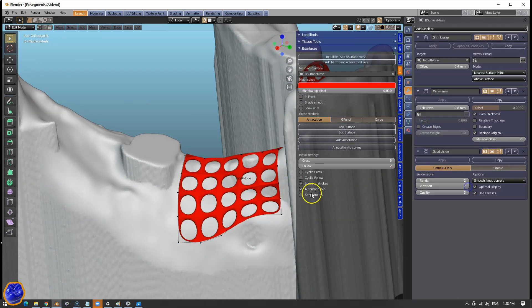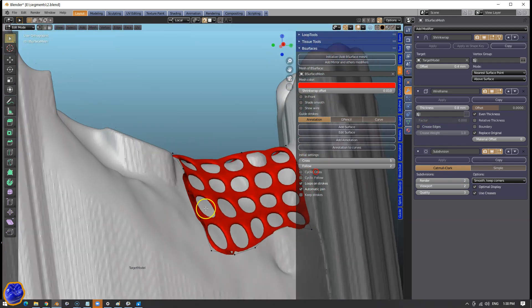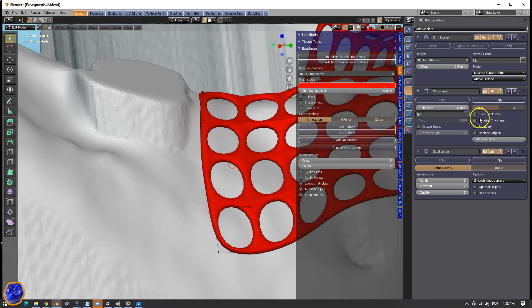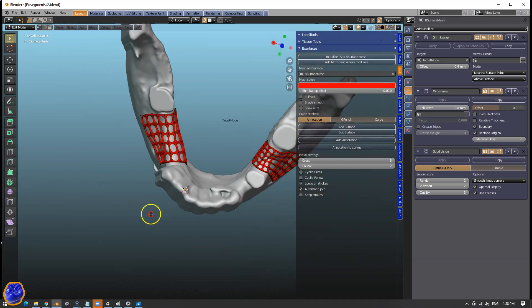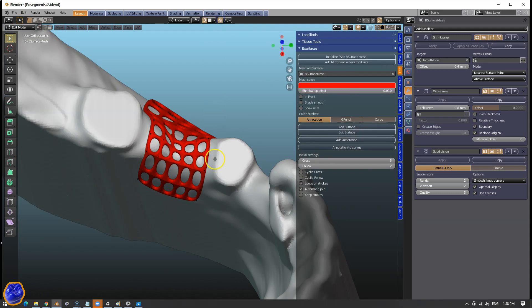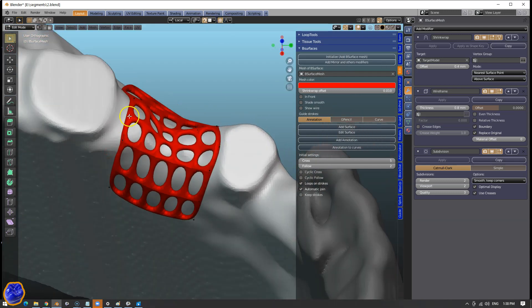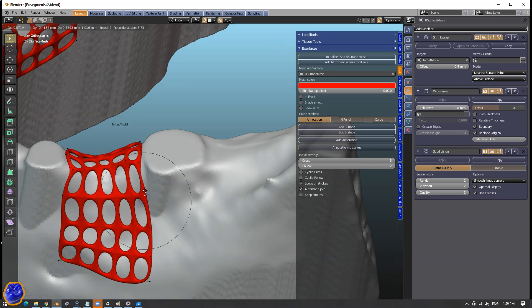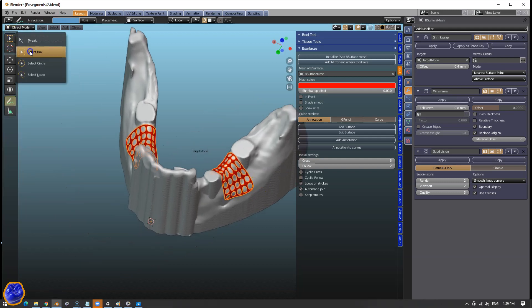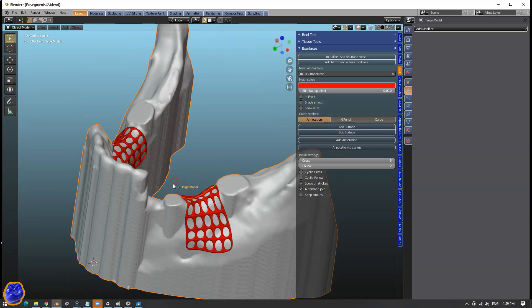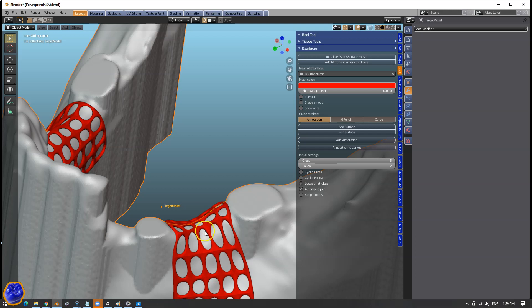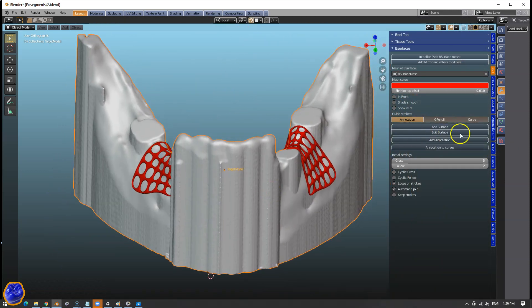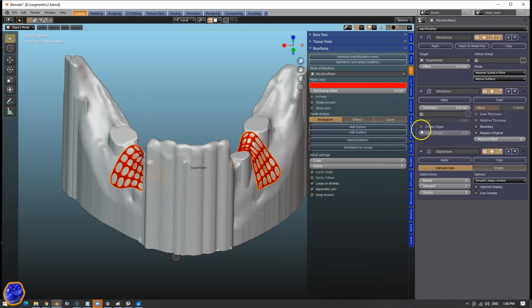Going to add another subsurface modifier and we're going to click that on number two. Notice that these borders are open. Click on that box boundary and deselect the even thickness. That can cause havoc if you've got a very complicated mesh. If you wanted to change that, you can pull it — make sure the snap magnet is on and the proportional editing is on as well. And you can shift this accordingly. Now if you wanted to add an abutment on top of that, you can easily do that as well. And that basically finishes the mesh. Now you can apply the modifiers or you can simply export it as it is, and then the modifiers will be applied automatically anyway.